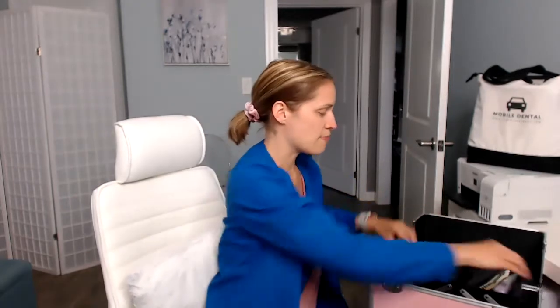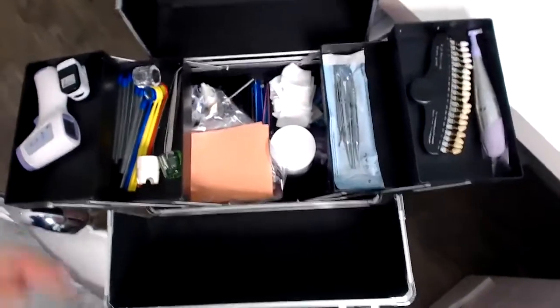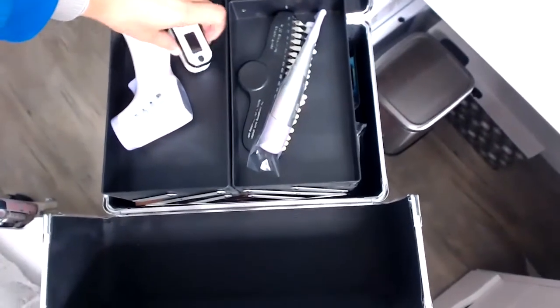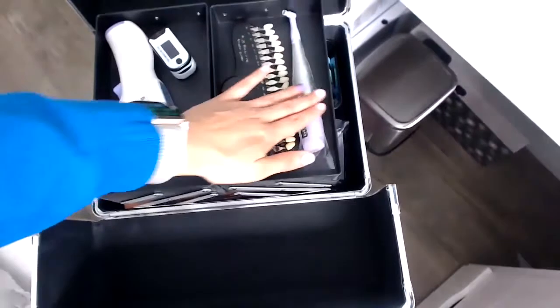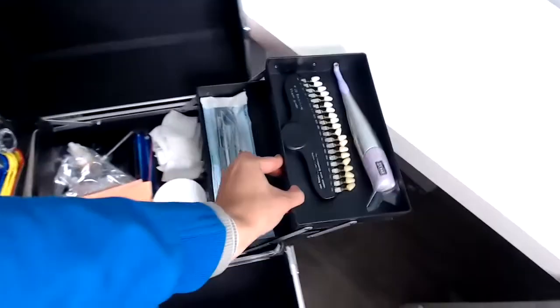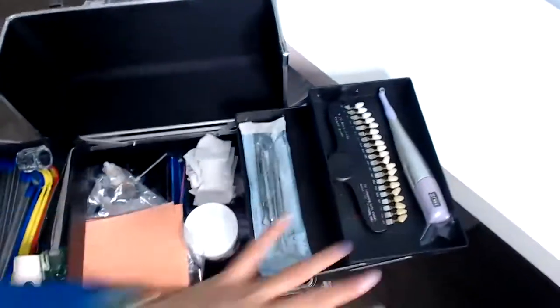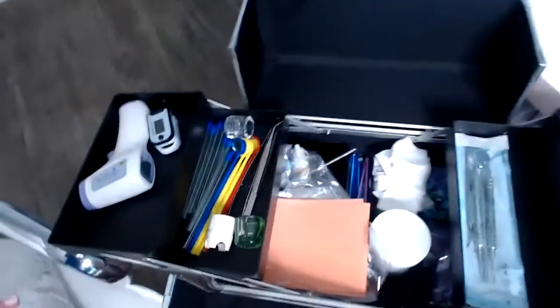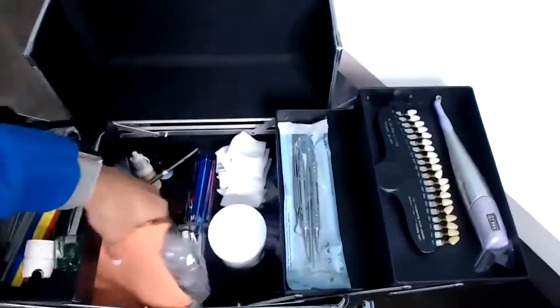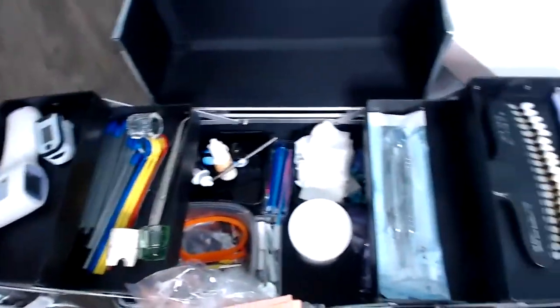I love that it has very sturdy locks — great for kids when they're kind of playing around. So when it closes, it looks like this. I have the thermometer, the oxygen saturation monitor, my polishing handpiece, and the shade guide. I kind of set it up for the video so I don't forget anything. I have extra things here, mainly to show you guys what you could have. What I do is keep my tray covers and bibs set aside — but look how much room is in there.